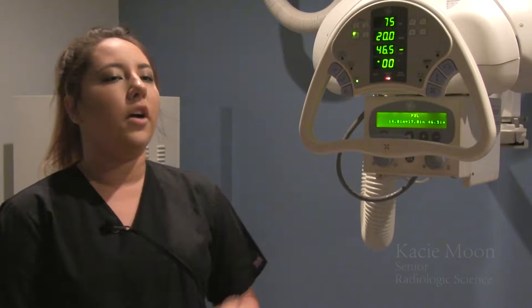As a radiologic technologist, we use three pieces of equipment: the tube, the table, and the wall bucky. We use these things in conjunction to produce a good diagnostic image so the radiologist can dictate it and provide good patient care.